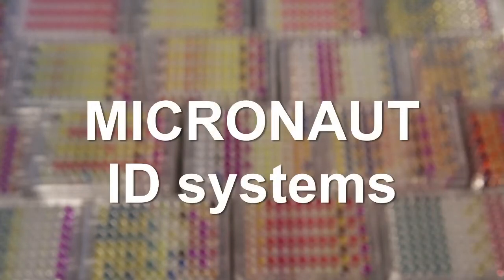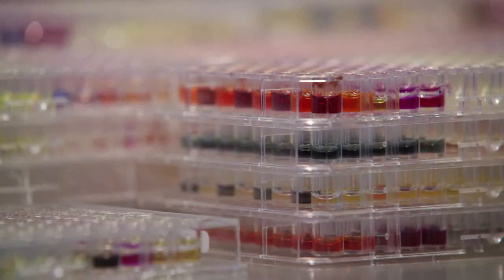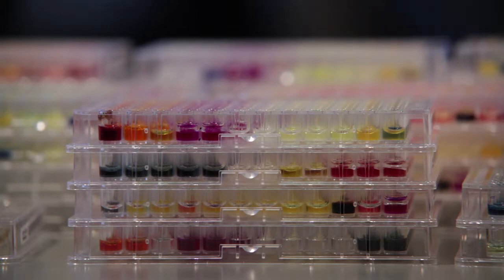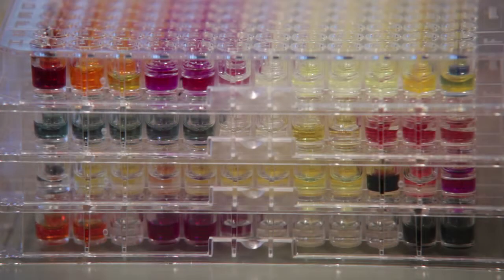Micronaut ID systems. Merlin systems for identification of bacteria and yeasts. Micronaut ID systems are based on biochemical reactions.